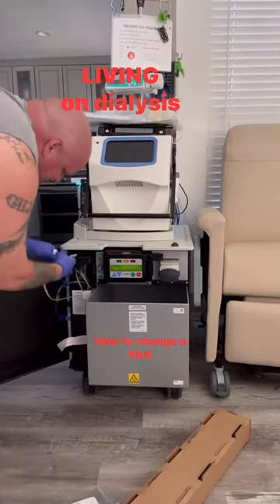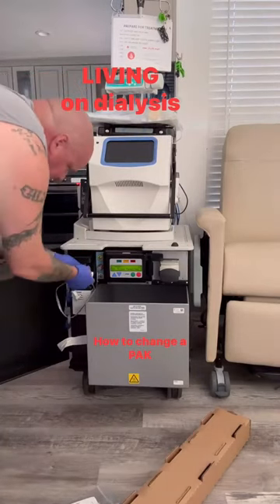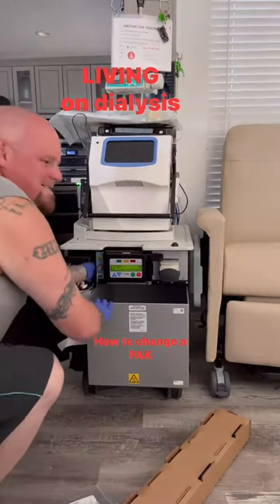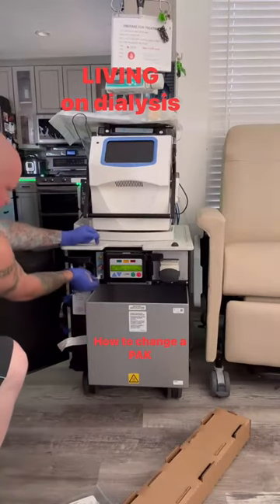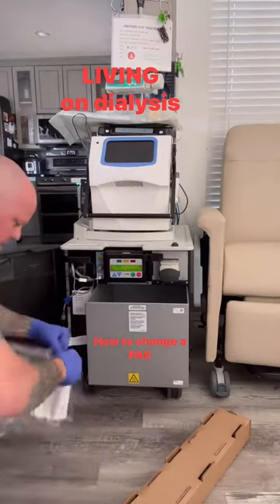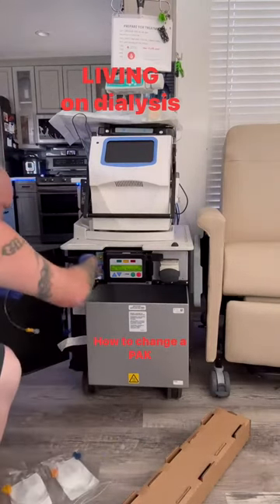Take the foam line. Remember it always sticks in — straight up and down. It's actually at an angle a little bit. And then connect your water line. And then get a new one of these and put it on.